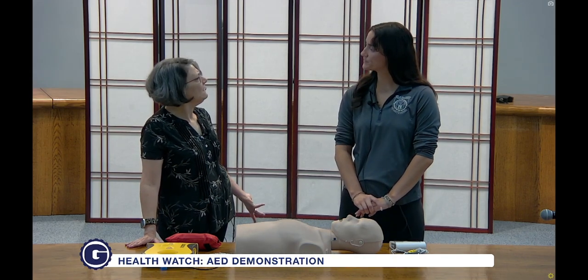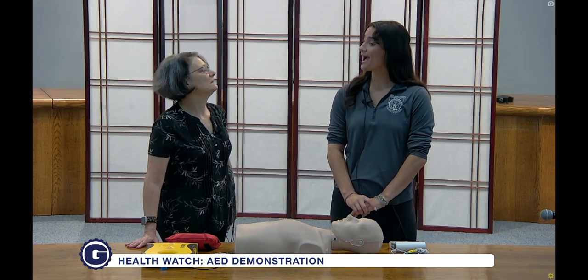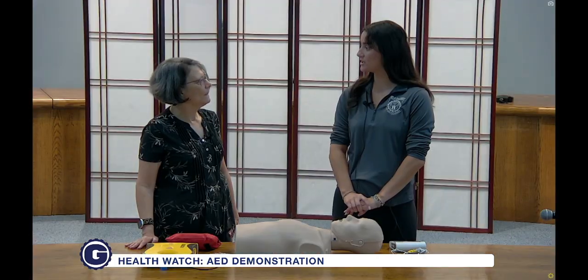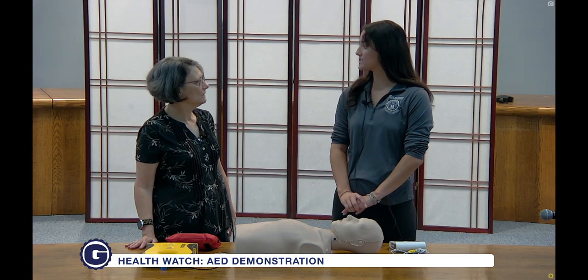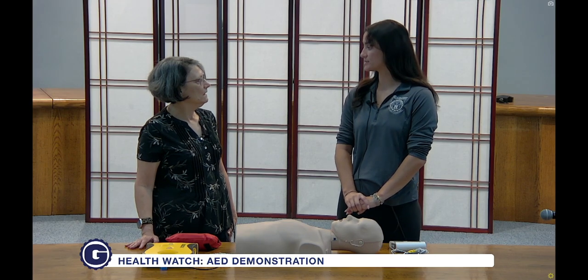What if I'm outside? We actually have them, thanks to the In a Heartbeat Foundation — we were donated 12 AEDs. Those are all located in parks around town and they are accessible to anyone using the parks.